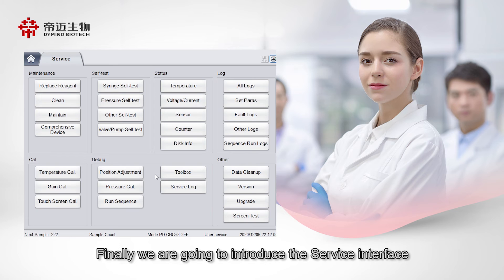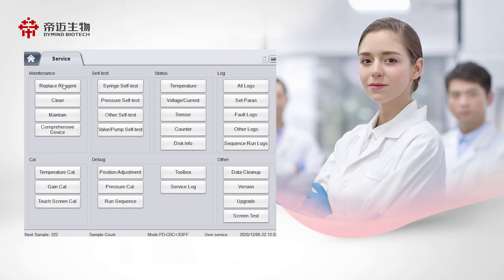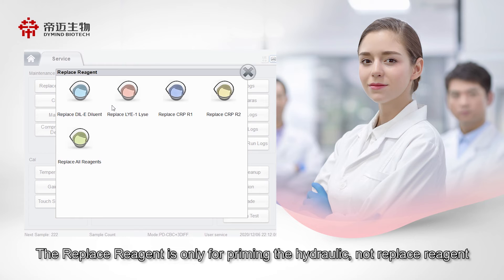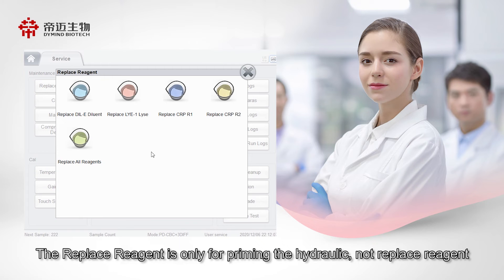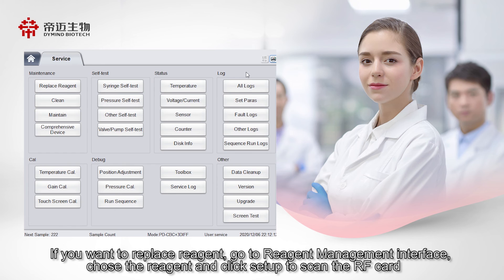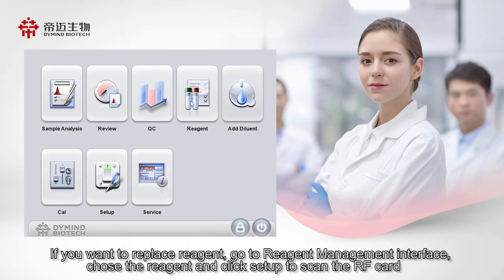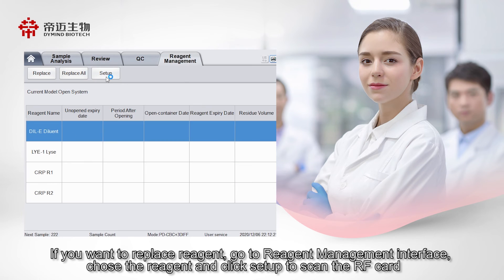The service interface is the final section. The Replace Reagent button is only for priming the hydraulic system, not for actually replacing reagent. If you want to replace reagent, go to the Reagent Management interface, choose the reagent, and click Setup to scan the RF card.